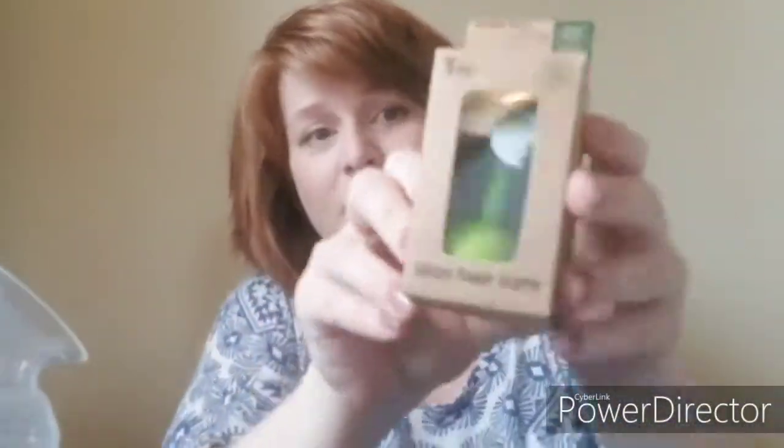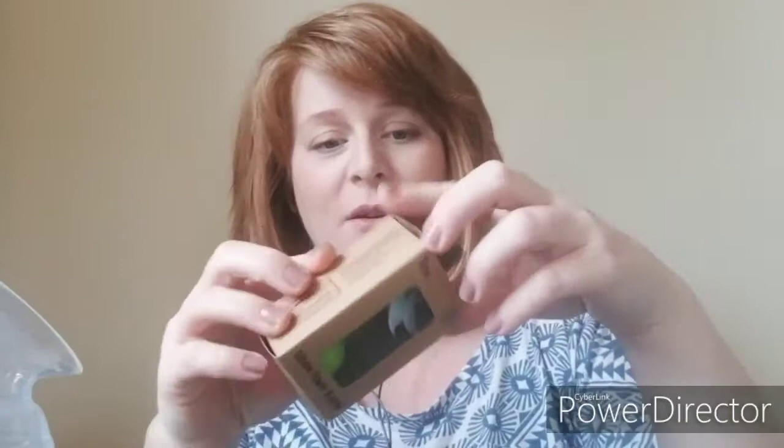Look at this little add-on option — this is the flower stopper. It is food-grade silicone, compatible with all Haakaa breast pumps, airtight seal design, retains breast milk's beneficial properties. Safe in the microwave, dishwashers, sterilizers, and boiling water. Easy to clean, and BPA, PVC, and phthalate-free.